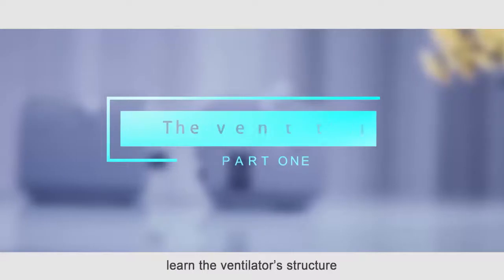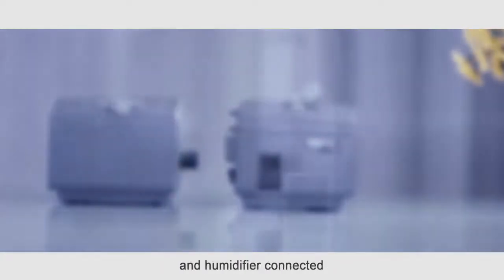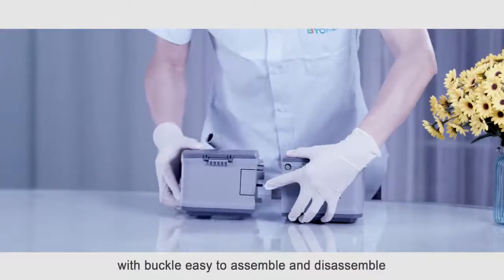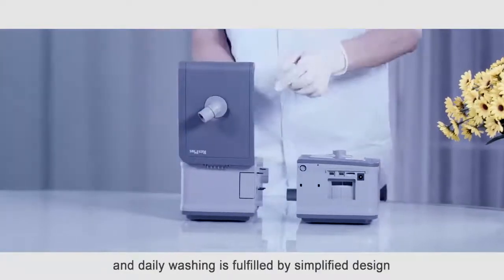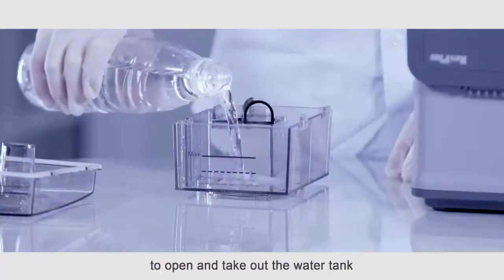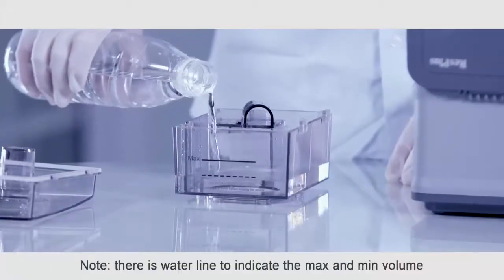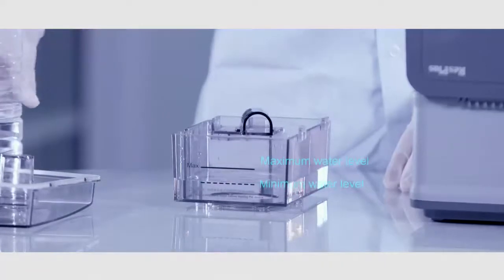Firstly, learn the ventilator structure. The machine is composed of a host and a humidifier connected with a buckle, easy to assemble and disassemble. Fewer steps of adding water and daily washing are fulfilled by the simplified design. Just open the upper cover of the humidifier and take out the water tank. Note: there is a water line to indicate the maximum and minimum volume.